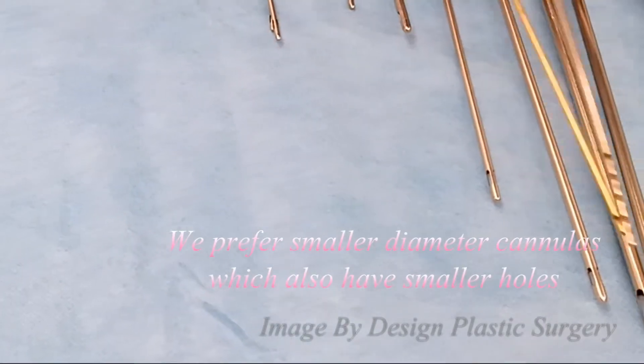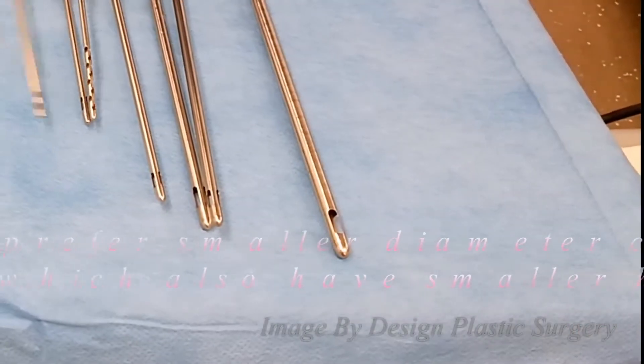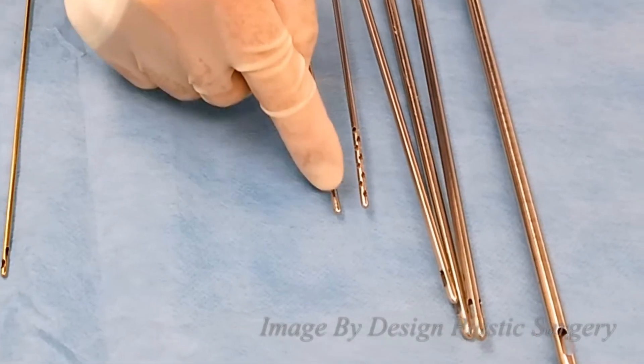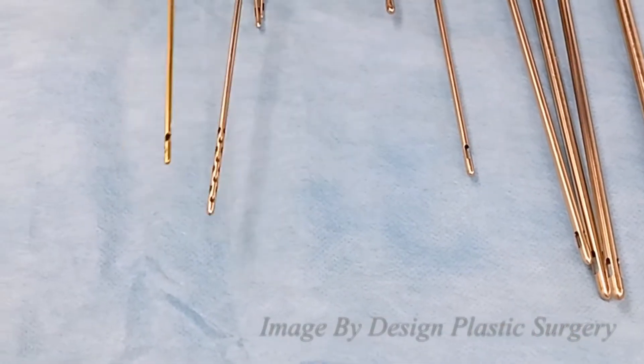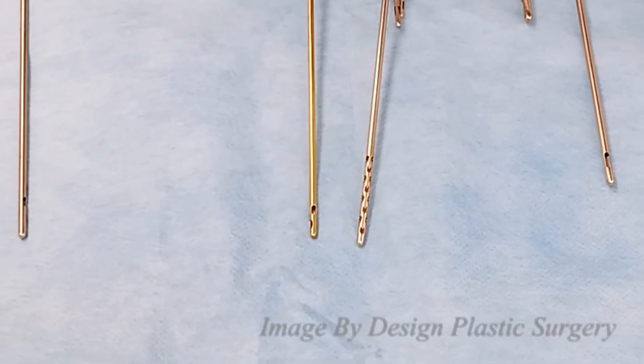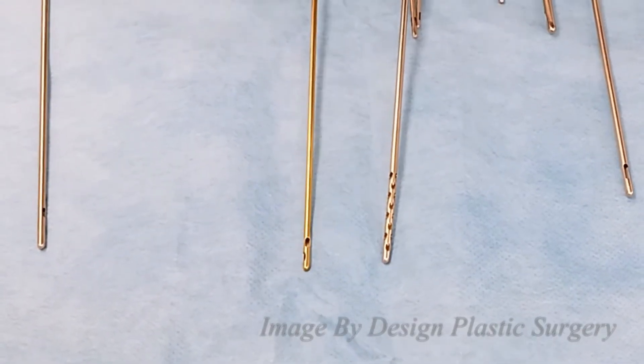But when I look here, you can see that even on the smaller cannulas, these holes are bigger than these holes. And it's these holes that allow us to remove fat at a certain size.